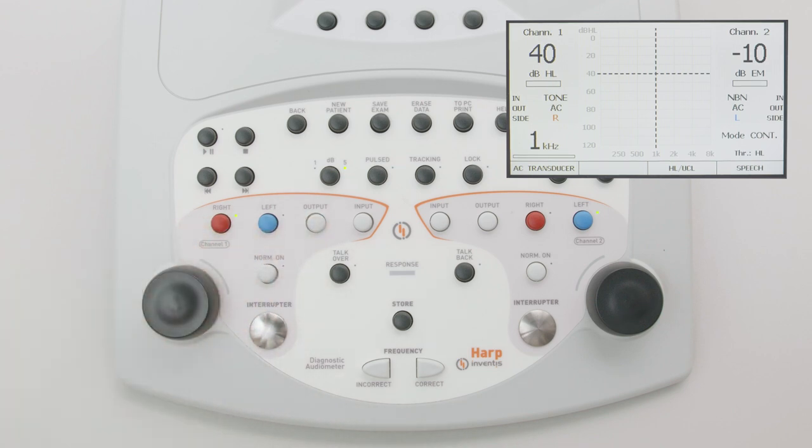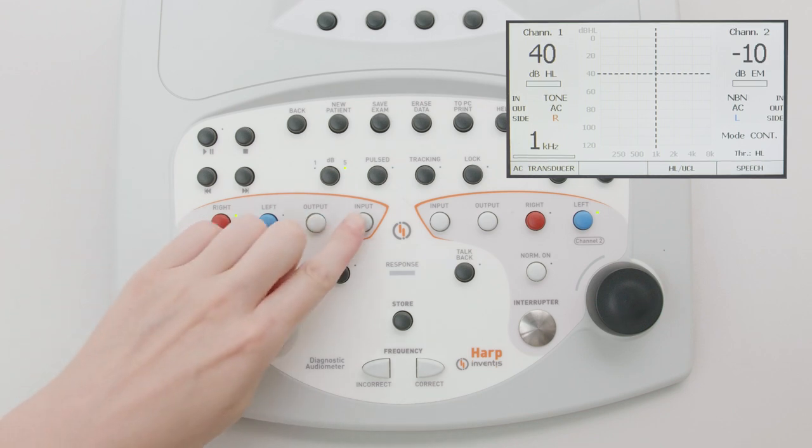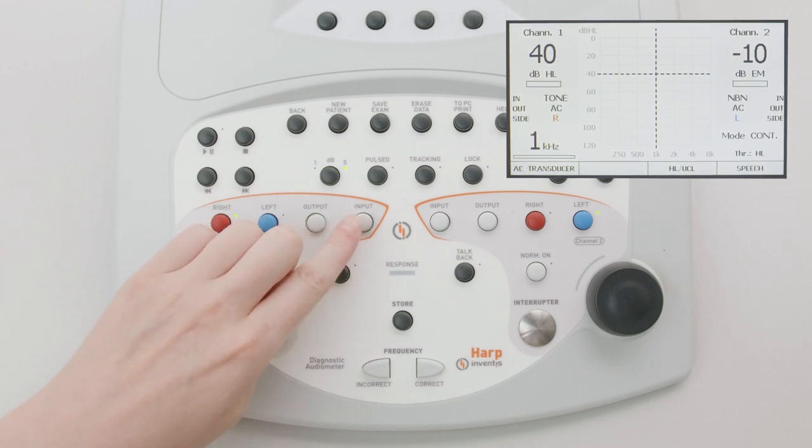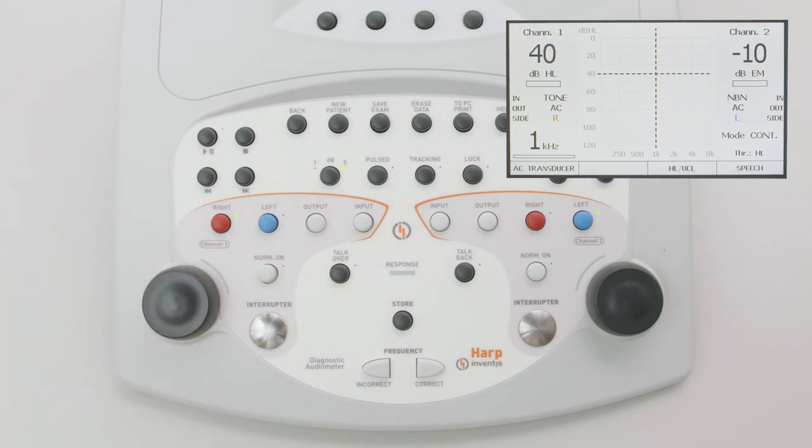The input buttons are used to select the input signal. For the pure tone audiometry test, the possible inputs are tone and warble for Channel 1, and narrow band noise and white noise for Channel 2. The interrupter is available for both Channel 1 and Channel 2.